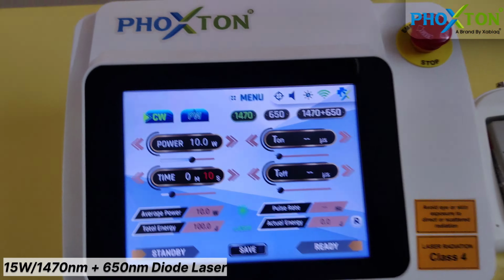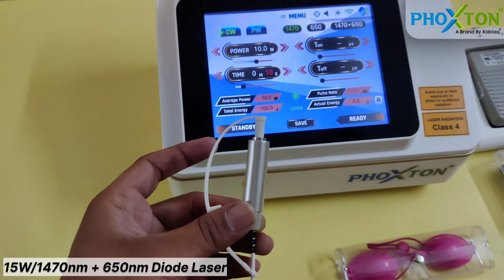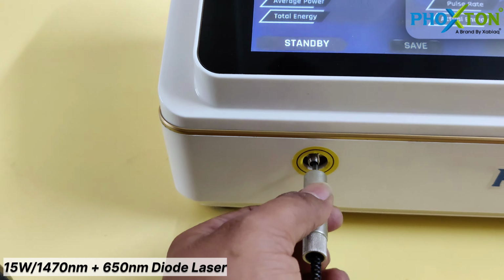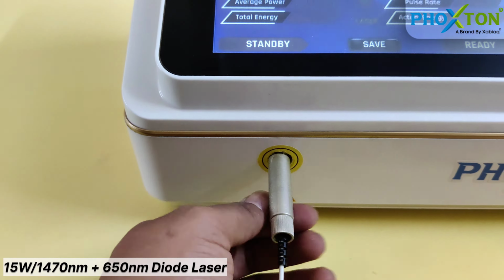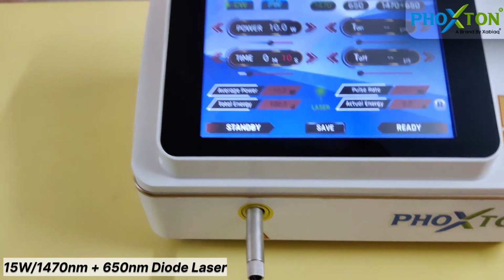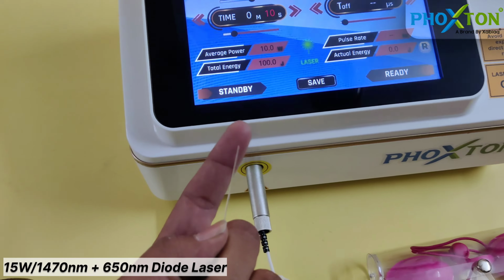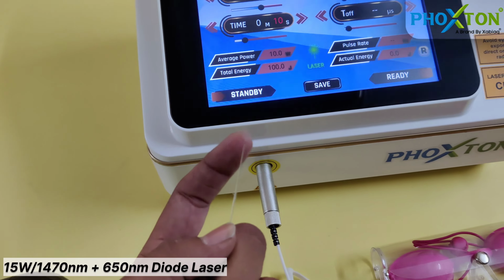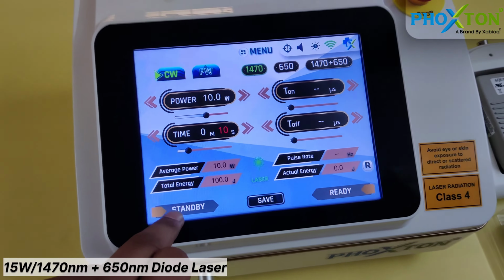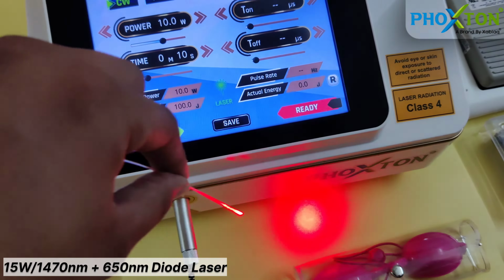We will keep this aside. This is our fiber connector. Now this is our fiber and we will insert the fiber like this. So here I have inserted the fiber. Check twice that it is properly connected and properly tightened. This is the bare fiber. You can see the tip of the bare fiber is straight, so the laser emission will be in a straight position. Now whenever I press the standby and ready button, the laser is ready to fire.